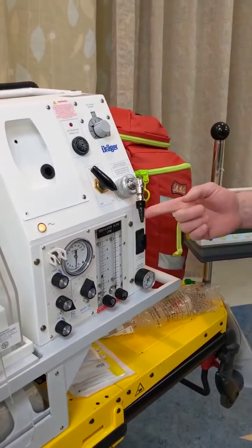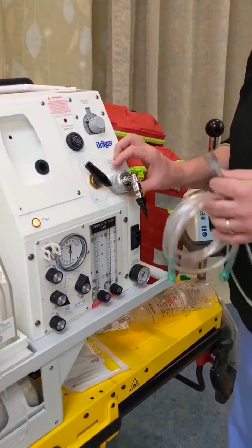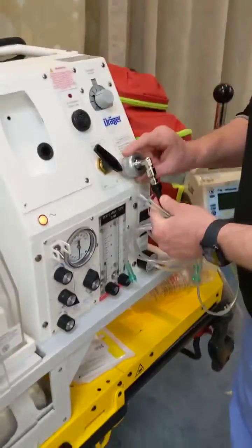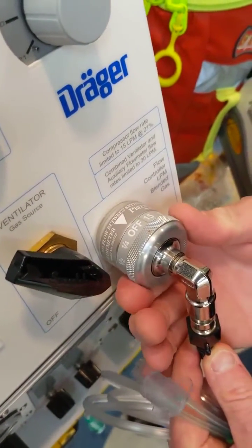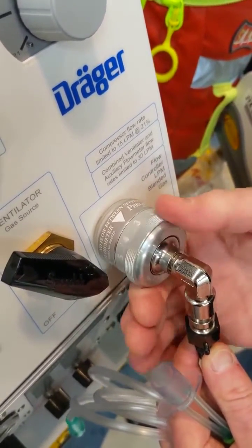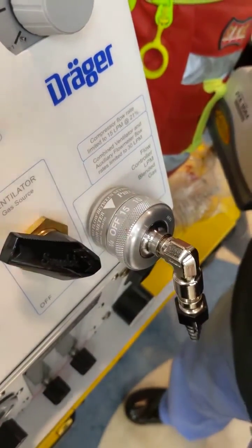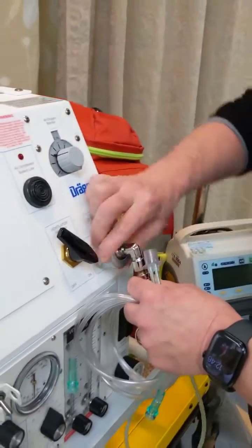It has a black Christmas tree. We called them nipples in my last hospital, so do what you want with that. The dial for that flow meter is attached right here. You can see it's off right now, and I can go 1/4 liter, 1/2 liter, 1 liter, all the way up to the 15 liters it takes to power an Ambu bag or a NeoPuff, which I believe you guys are utilizing this to power.